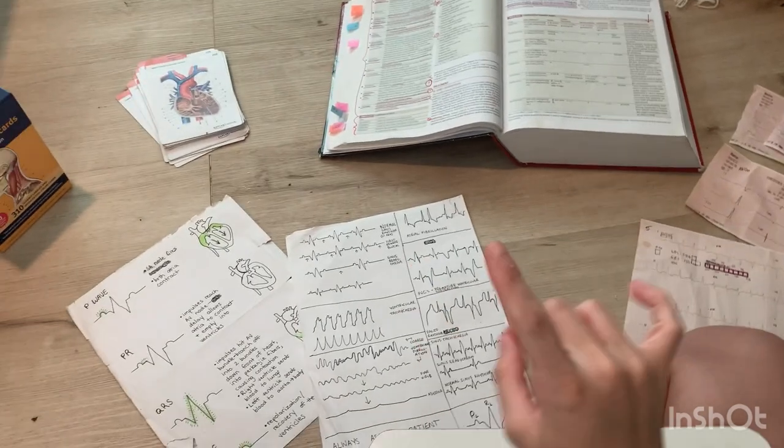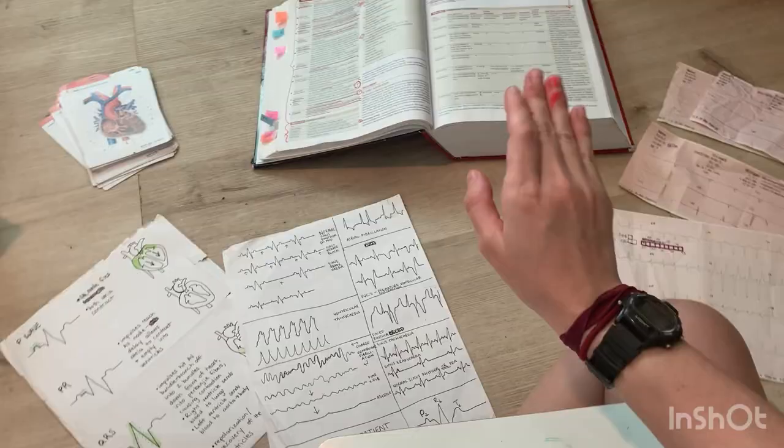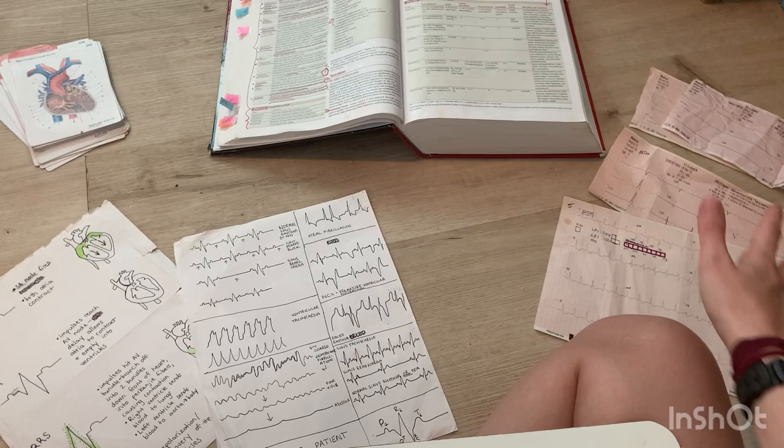This video is specifically for Ben Clark EMT students who have been given their sheet of EKG rhythms that they have to memorize. This video is not an explanation of the basics of 12-lead interpretation, and is not going into any more detail than the standard shapes of some of the EKG rhythms.